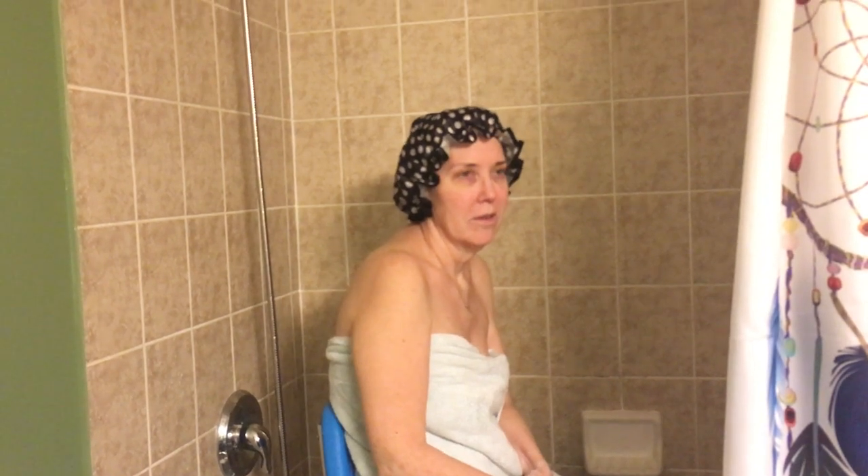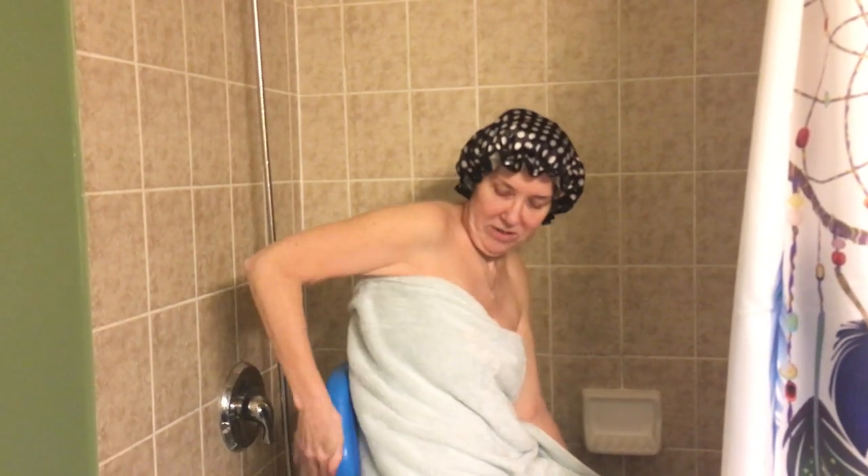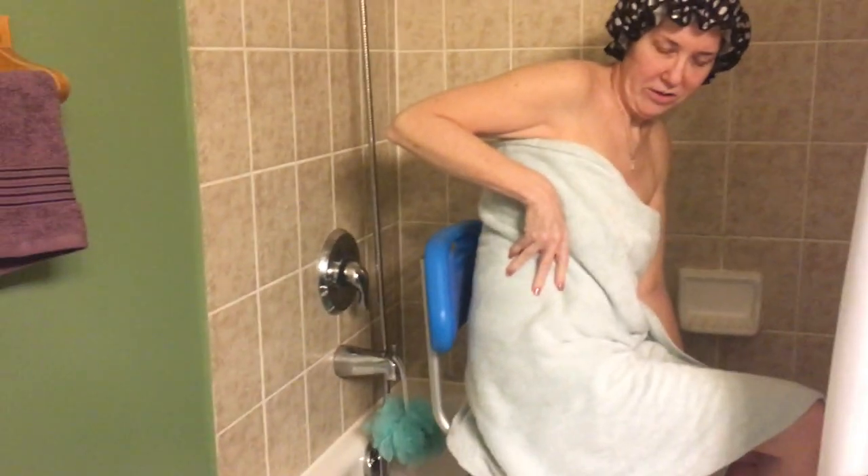Hello, this is Empty Andrea. I hope you're all having a good evening. It's Sunday night here and I'm getting ready for my work week. It's the last work week before Christmas or the holiday season, whatever it is that you celebrate. I thought I'd do an in-person demonstration of this new transfer chair that I have.